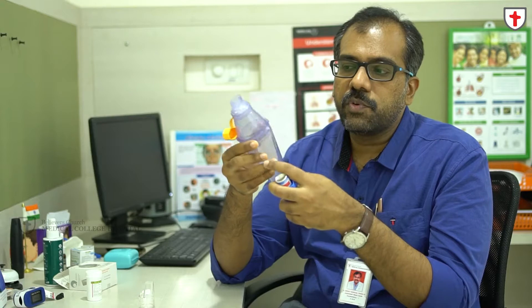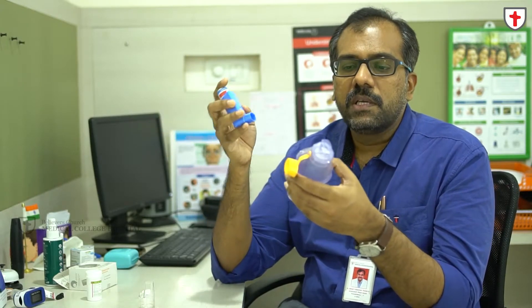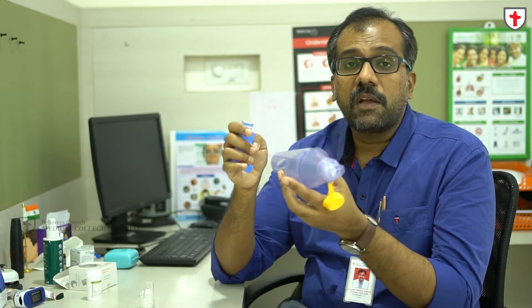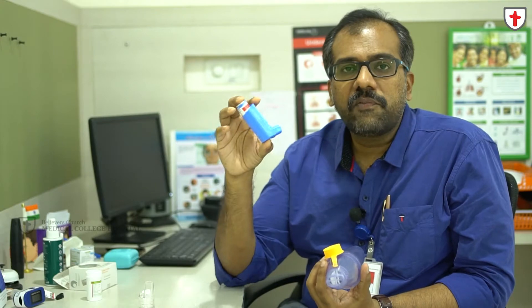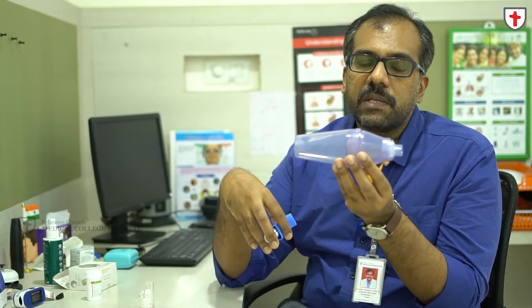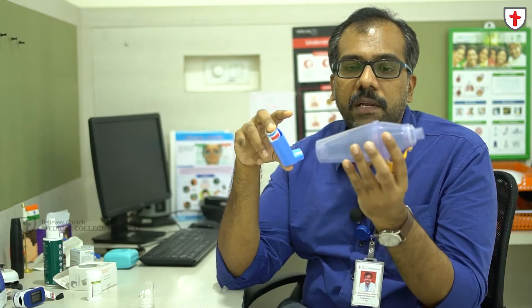This is a spacer device. The first and foremost advantage of using an MDI with a spacer device is that drug wastage will be reduced. Without a spacer, most of the medicine disintegrates outside as fumes and gets deposited within your oral cavity, with less than five percent of the medicine going inside your lungs. Using a spacer also helps avoid local side effects like hoarseness of voice, throat ache, and sore throat.